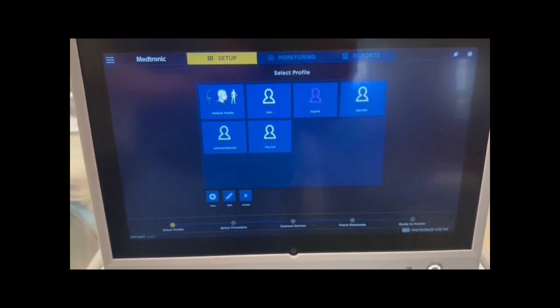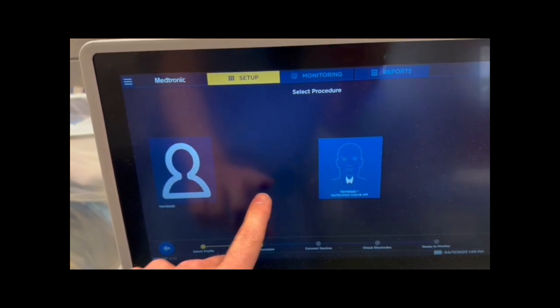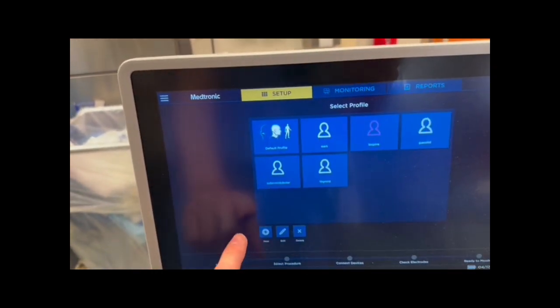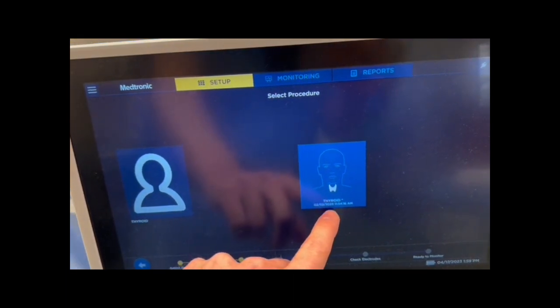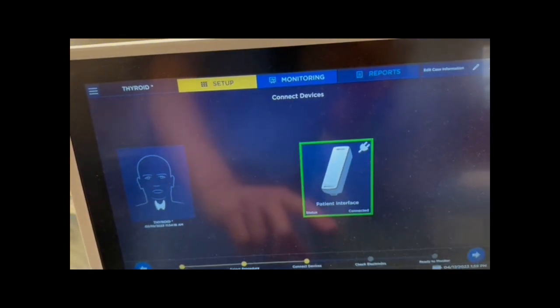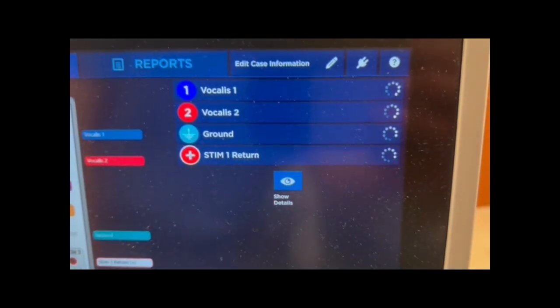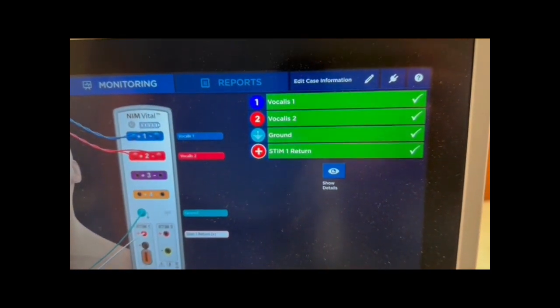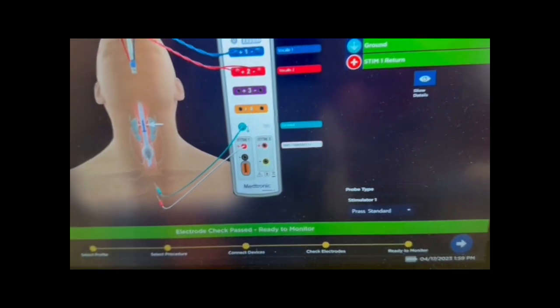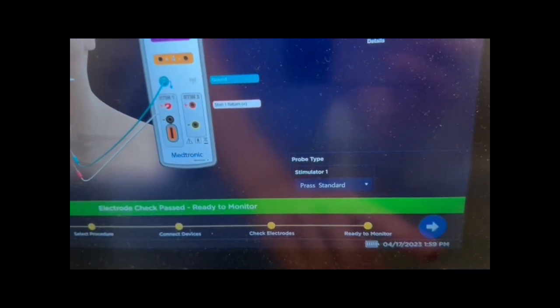On the screen, if you haven't done so already, you choose the type of case — thyroid or parathyroid — and then click on that. This is the time when you get to make sure everything appears to be working. There's a check on the grounds and the various channels. Then you press the button in the lower right-hand corner to proceed to monitoring.